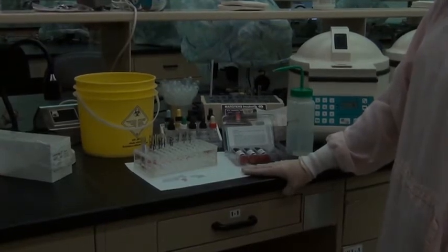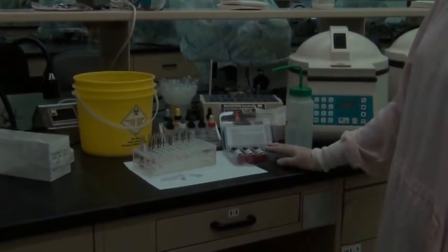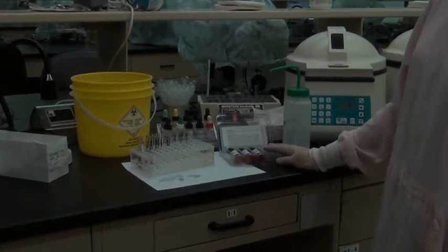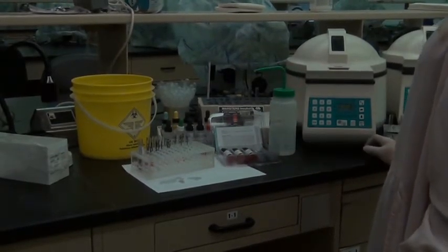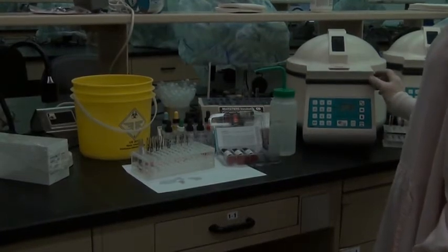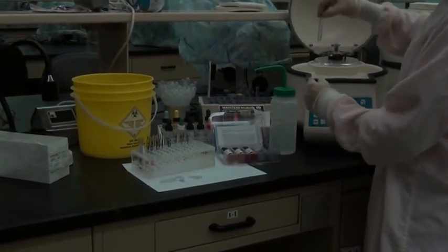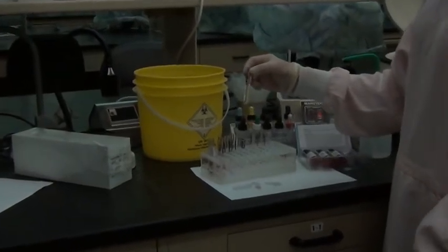Don't worry, you only have 1 drop of the screening cells in those tubes, so that 1 drop of cells will be very well cemented down there on the bottom of the little test tube and it should not come out. Okay, so grab the tubes. We'll do 1 tube at a time right now, just so that you get the hang of it.